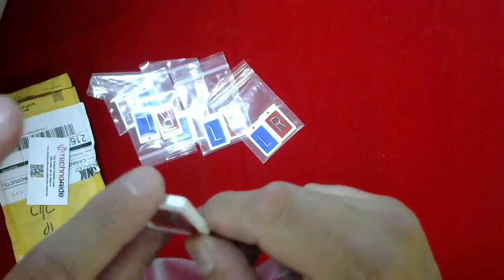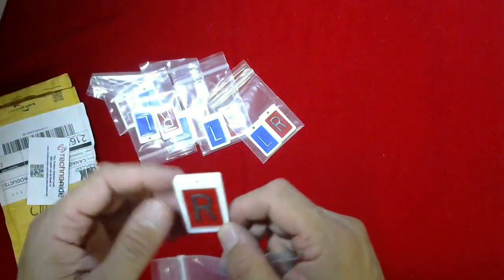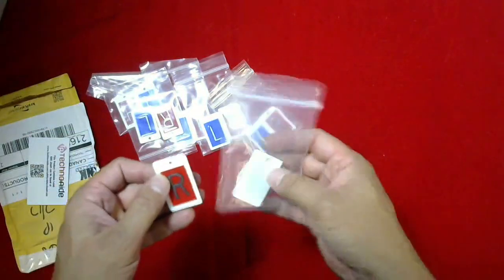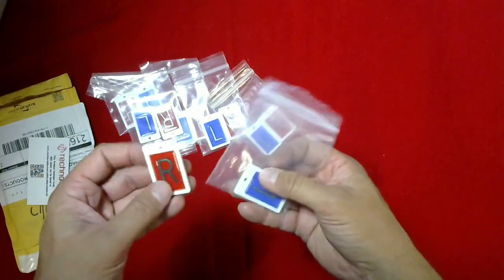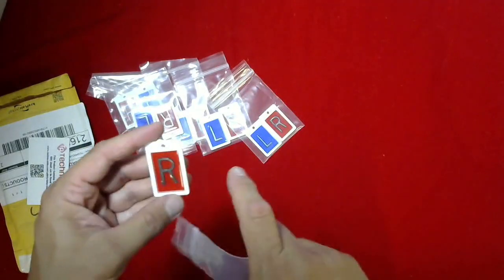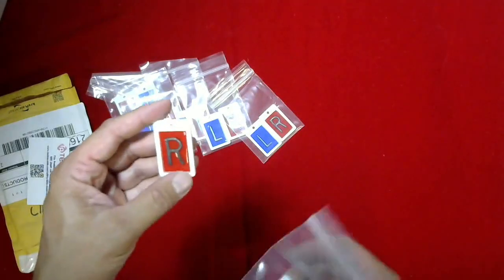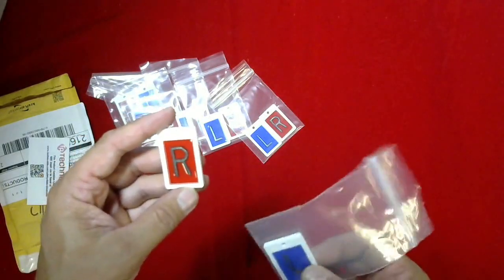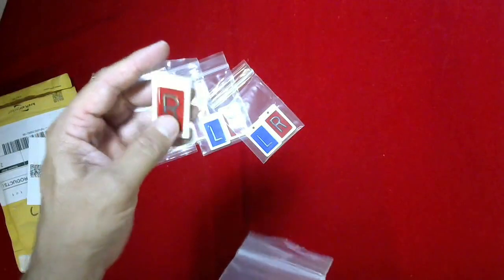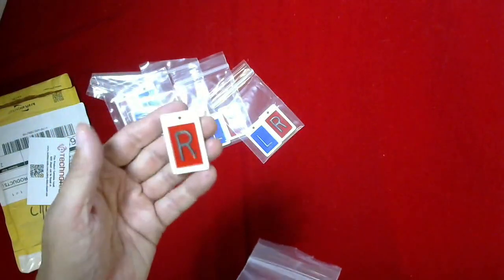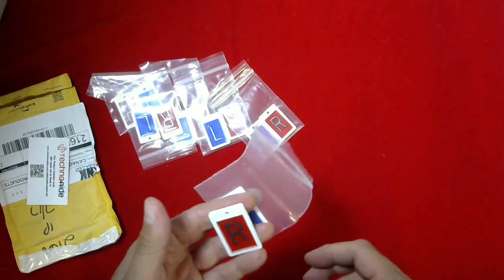You could hang it on a board, keep them organized. I think a lot of these actually get taped onto the cassette. So this is it, quick unboxing for you there.